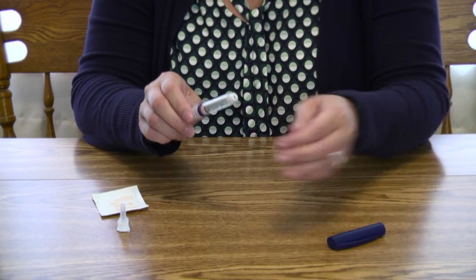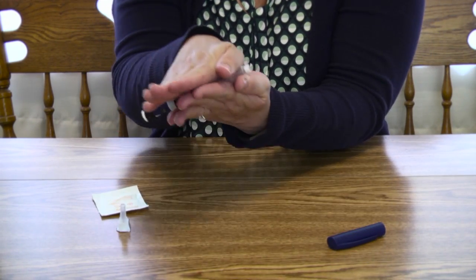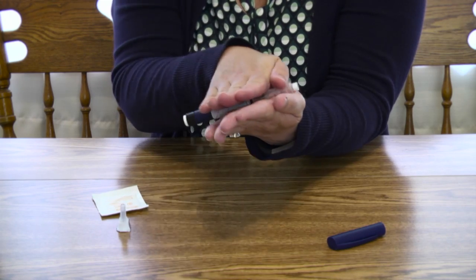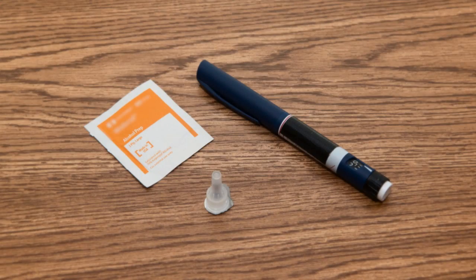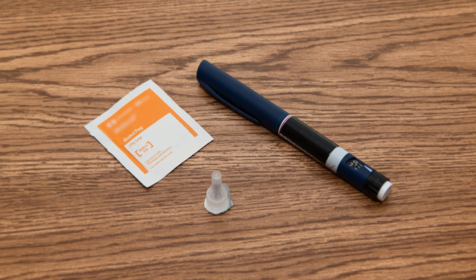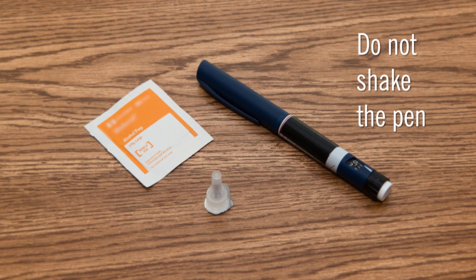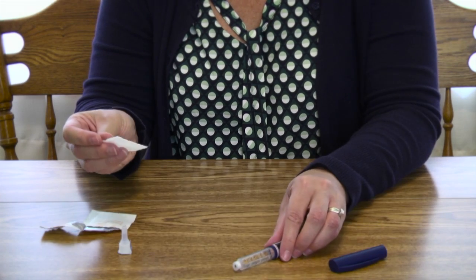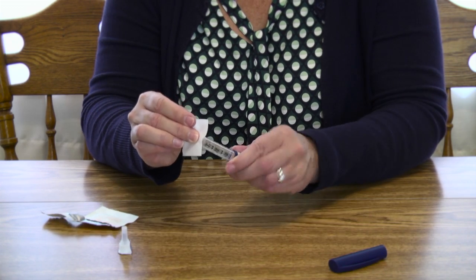Remove the cap of the insulin pen. If the insulin in the pen appears cloudy, roll the pen in your hands and turn it from side to side for one full minute. You do not have to roll the pen if the insulin is completely clear. Do not shake the pen. Wipe the rubber stopper with an alcohol wipe.